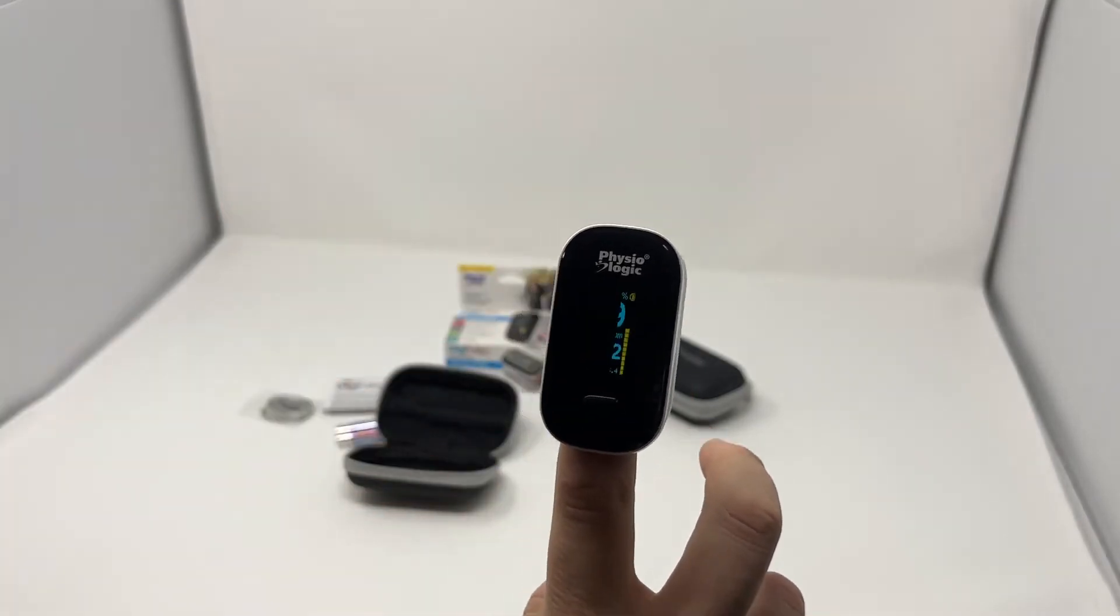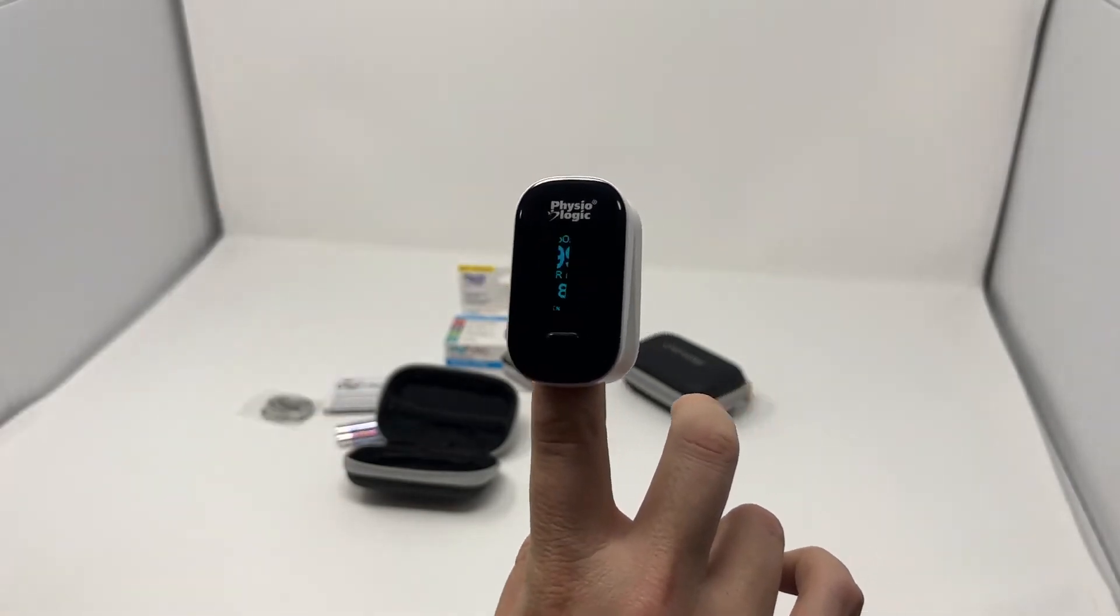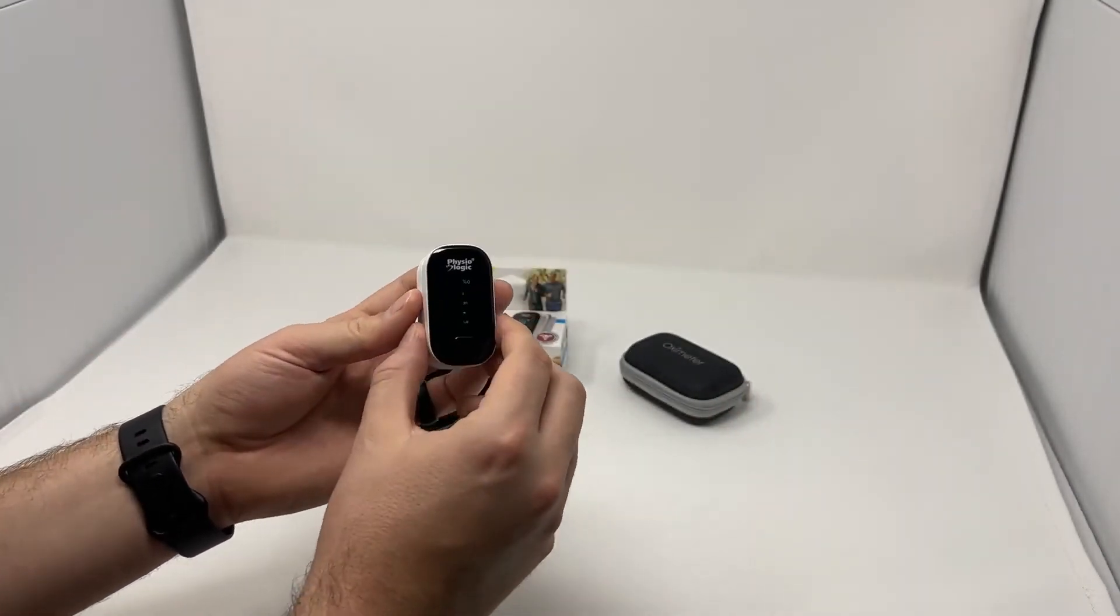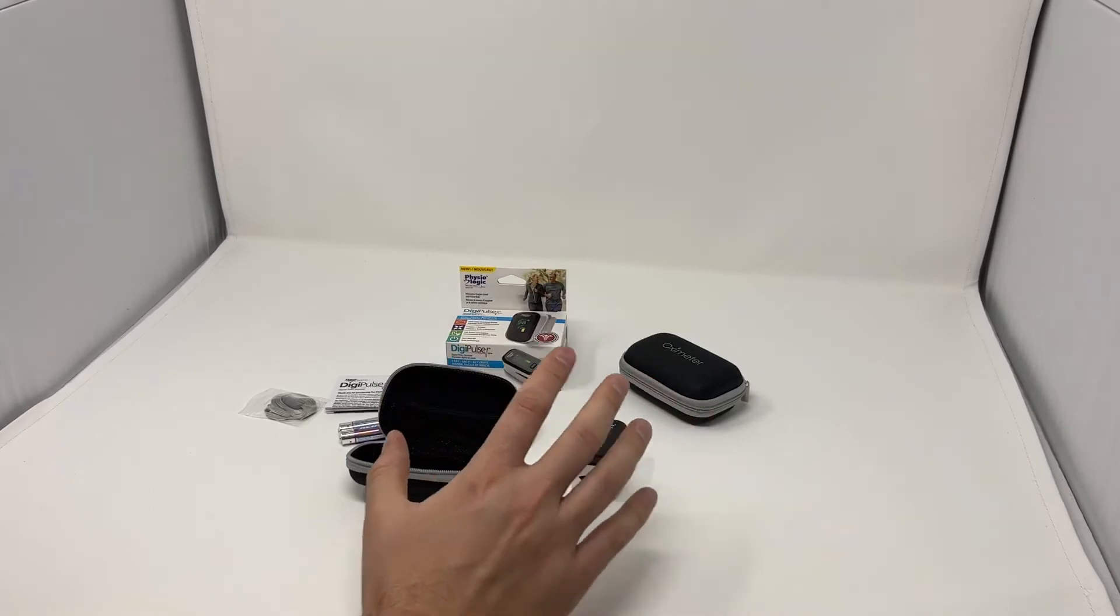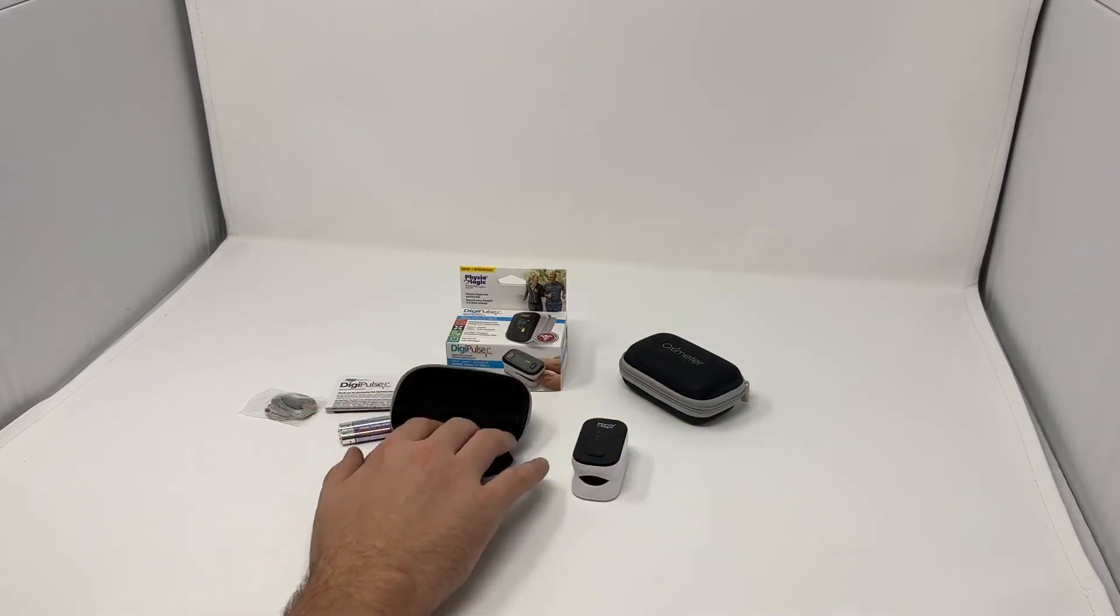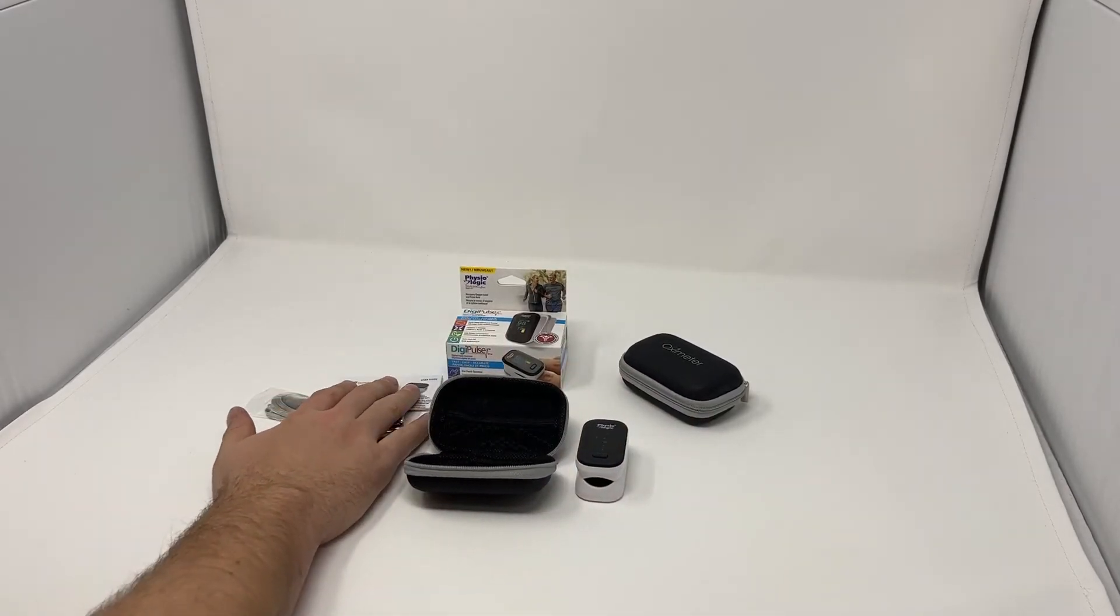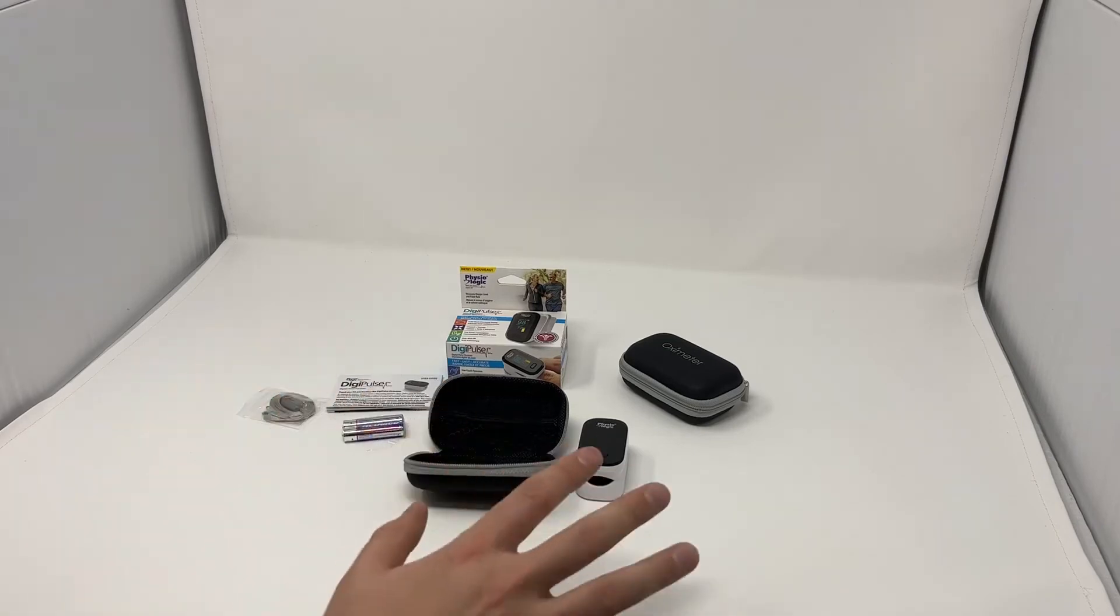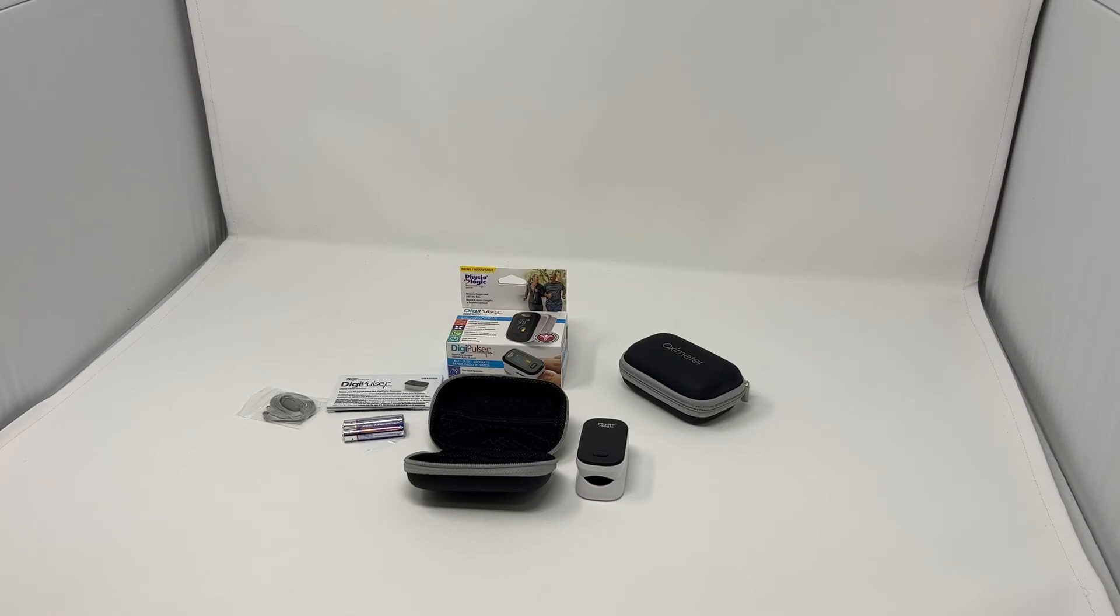Really high quality color screen. It has your battery indicator on it. And like I said, you're not just getting this meter, we sell this as a kit. So you're getting the case, batteries, your instructions, the lanyard holder. And this is a Health Canada approved accurate pulse oximeter. These are now available at wildmedkits.ca.